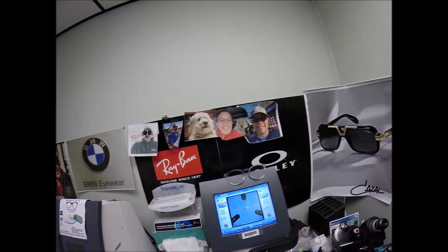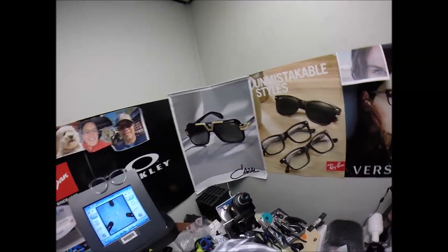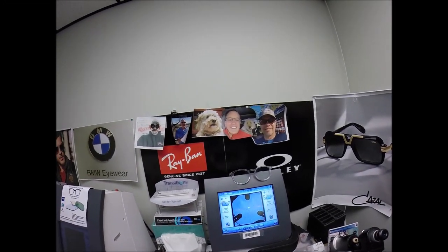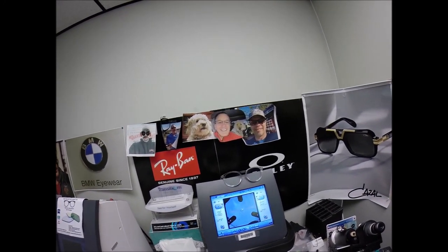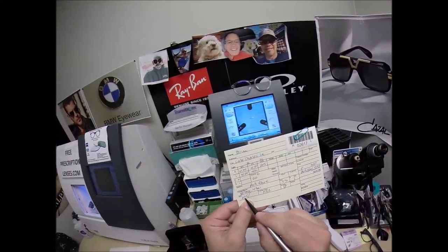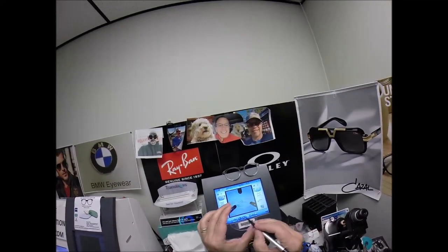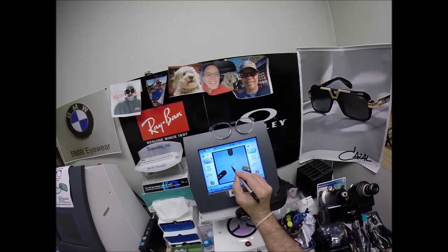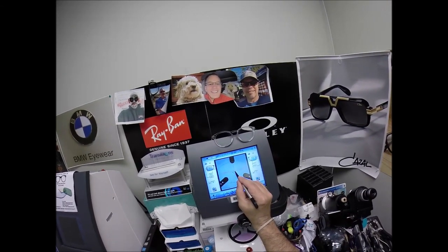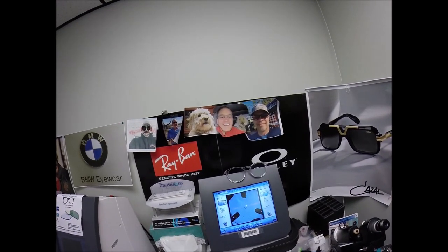The reason why I put those three dots on there is it tells me that the lens is oriented and perfectly aligned. Now the reason I can't cut 67.5 and put it at 67: if I were to place this black dot — and this is that blue block; the blue cross is the geometric center of your frame — your eyes just inset from that, if I put it just inside that orange box that would give me 67.